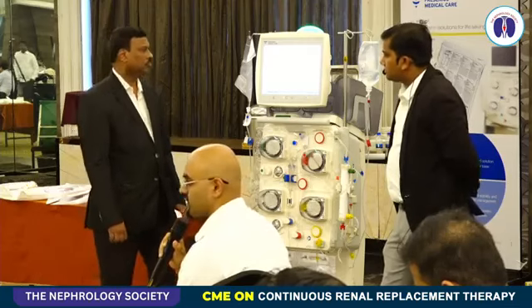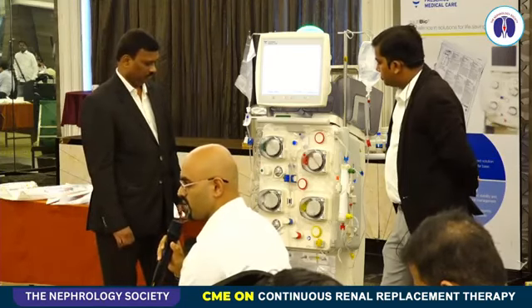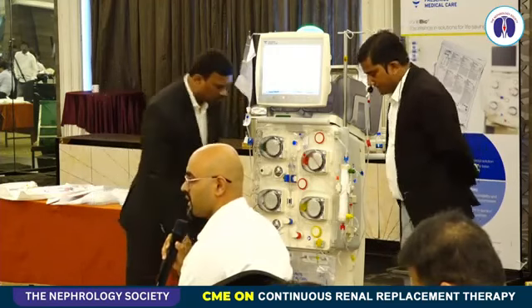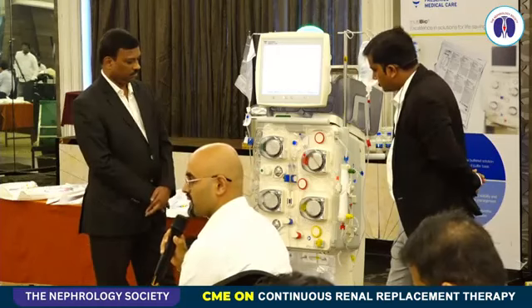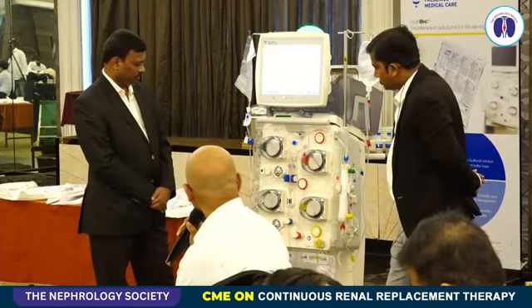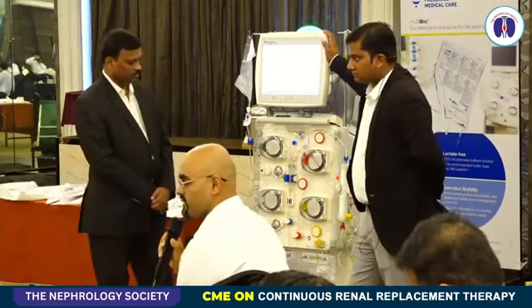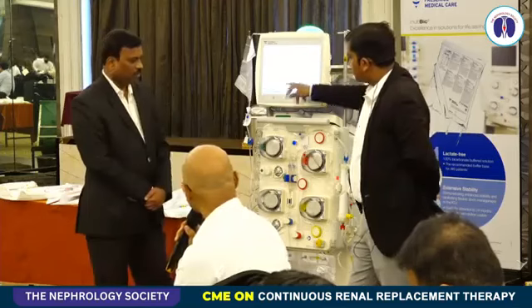In a usual adult, let's say, the blood flow is kept around 150 to 200 ml per minute, usually not less than 100. That's the usual blood flow, and depending upon the modality that we are choosing, whether it's CVVHD, HF or HDF, that will determine the type of effluent and the dialysate that we are going to set in this machine. Here they have set around 1000 ml per hour of substitute and 1000 ml per hour of dialysate. The calculation of how it has to be divided between the dialysate and the replacement, I think we already discussed in the morning. That's how the settings will come.